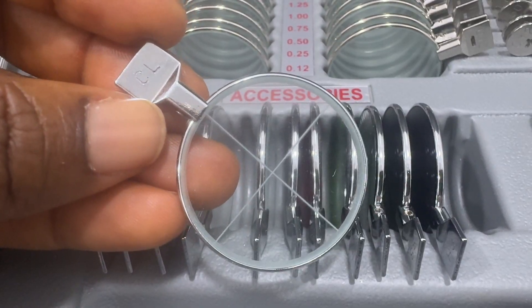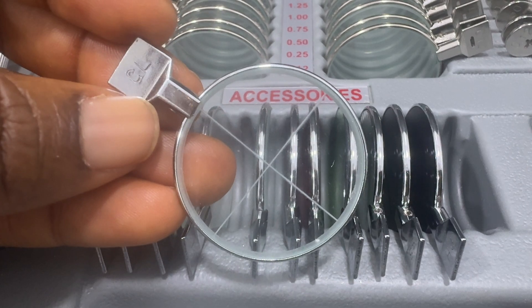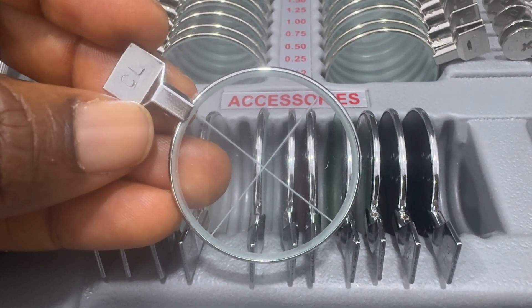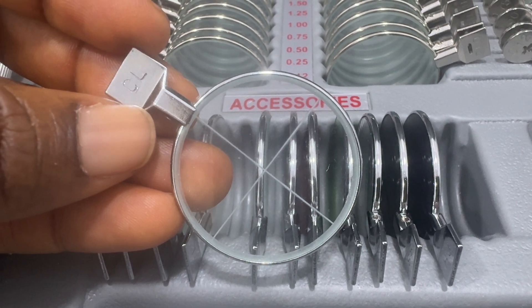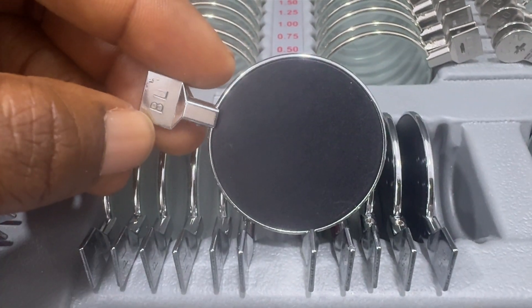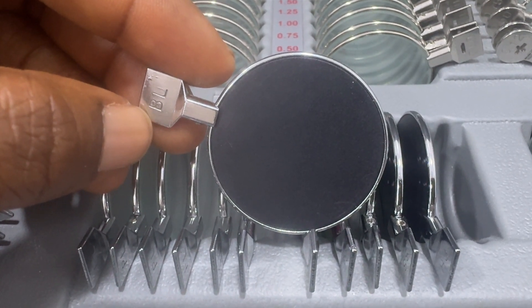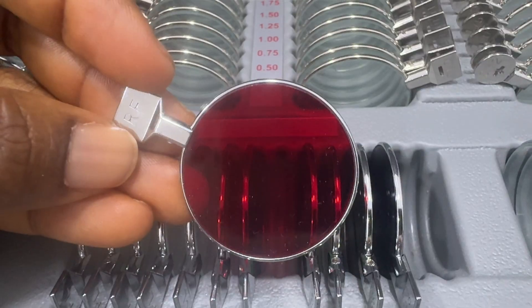The cross lens contains perpendicular lines used for centering pupils and measuring pupillary distance. This is an occluder — it is used to close or cover one eye during refraction. Remember, we perform refraction separately for each eye.